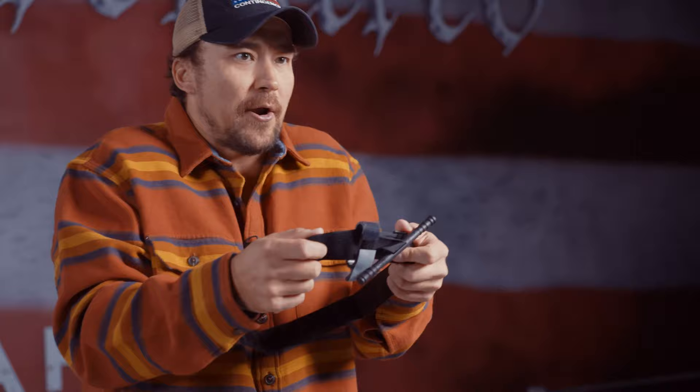When I was in the military in the infantry in the 90s, we used to use cravats and sticks. There's really no change to this, except it's just better made. This is your stick, and this is your cravat. In the Civil War, they used these things on the battlefield to stop bleeding and to be able to sever an extremity when doing surgery for extreme wounds. So in principle, if I understand that, I could use my belt, my shirt, or whatever I have at my disposal that follows these principles.